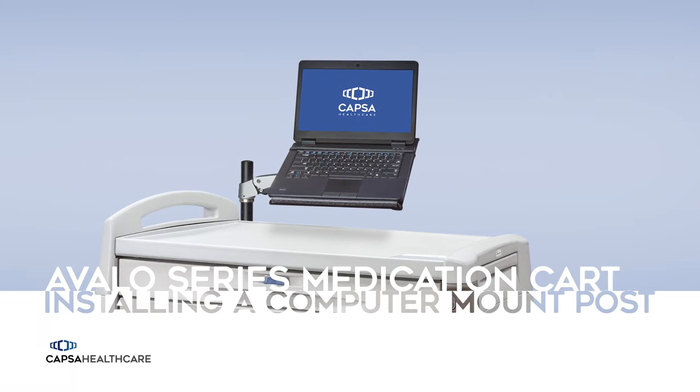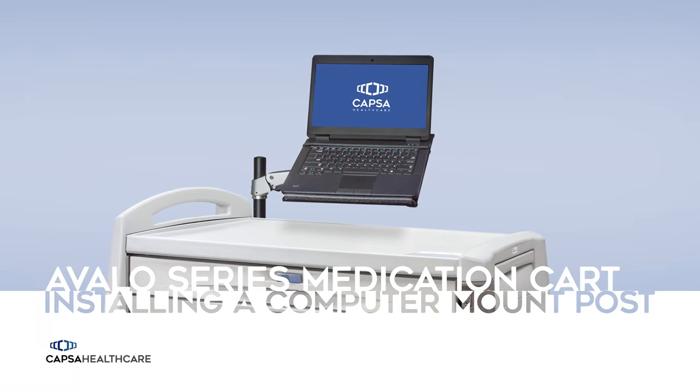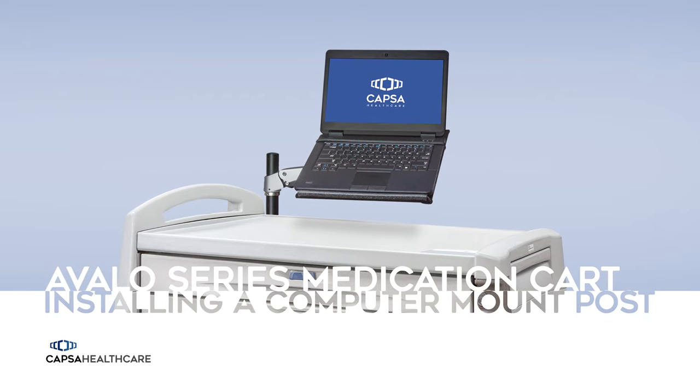Installing a new computer mounting post onto an Avalo medication cart. A help video to support your Capsa product.